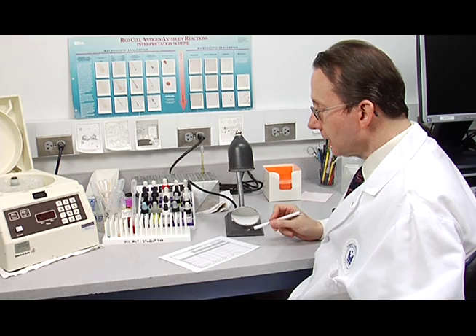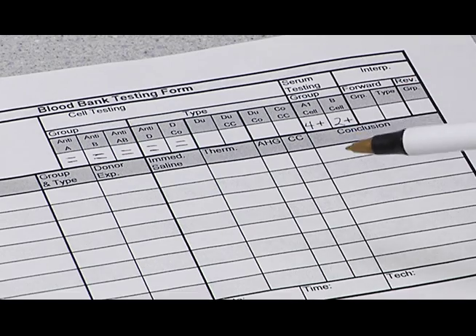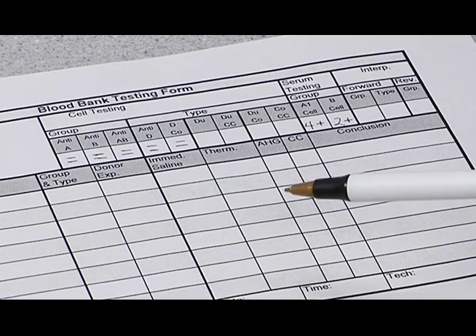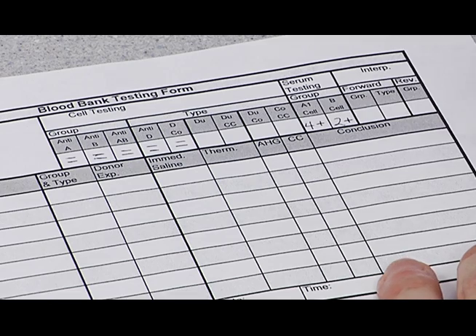To begin the interpretation, we look at the cell testing and look at the group. You can see that anti-A and anti-B and anti-AB are all negative. So that would be an O for the forward group. And we'll record that right here.